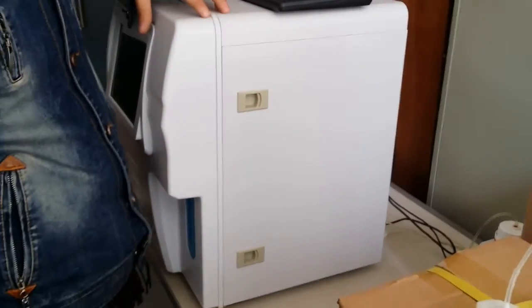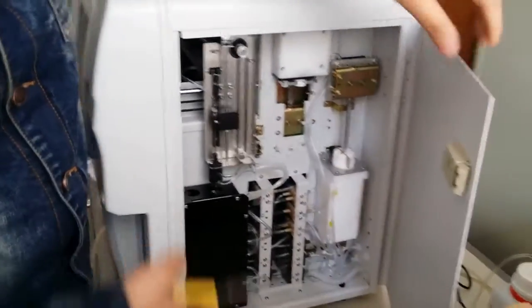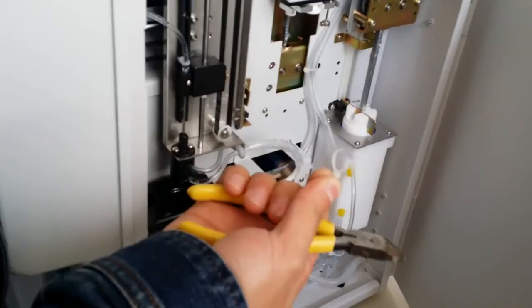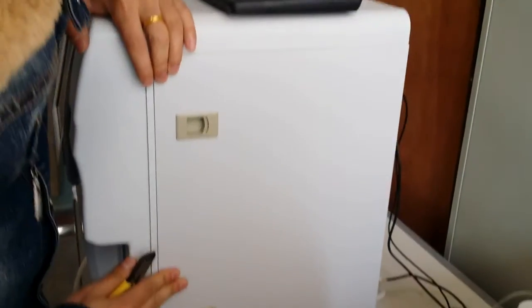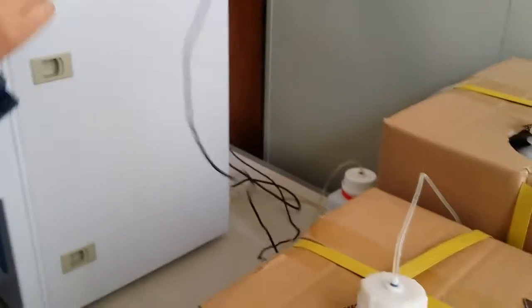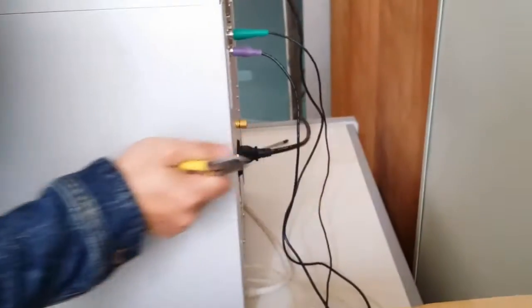Welcome to use Hematology Analyzer. When you pick out the machine, first open this cover. Cut off this — we use this to protect the needle during the shipment. Then check every accessory: keyboard, mouse, the reagent tube, and the cable.